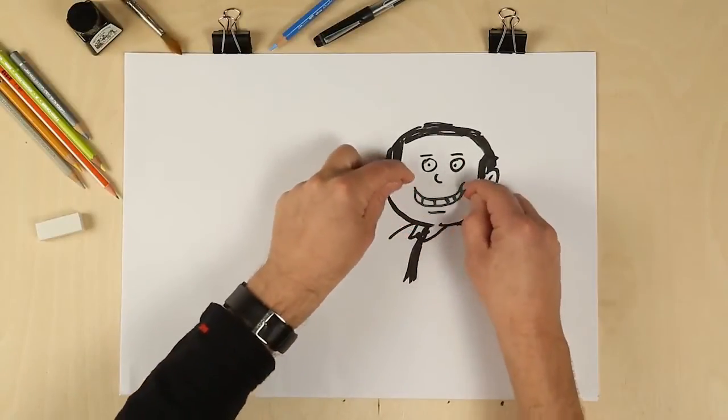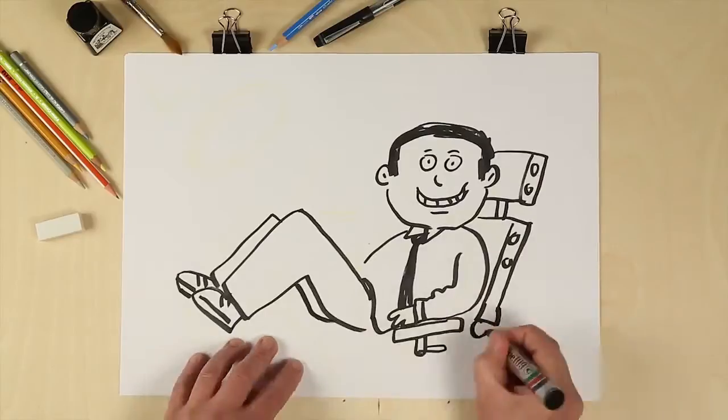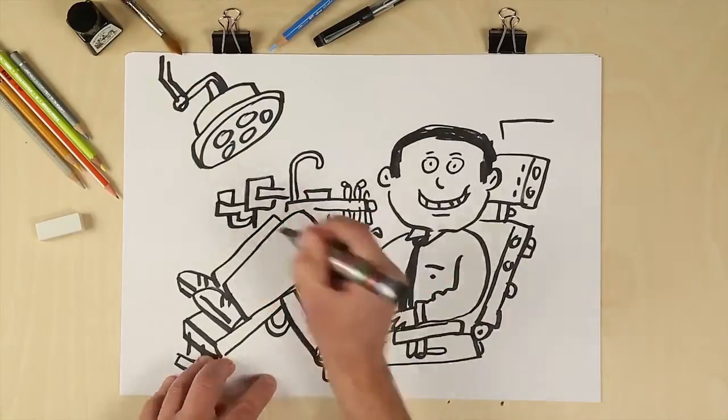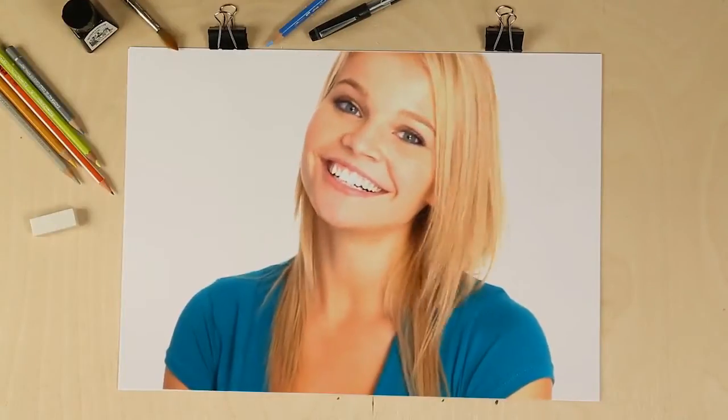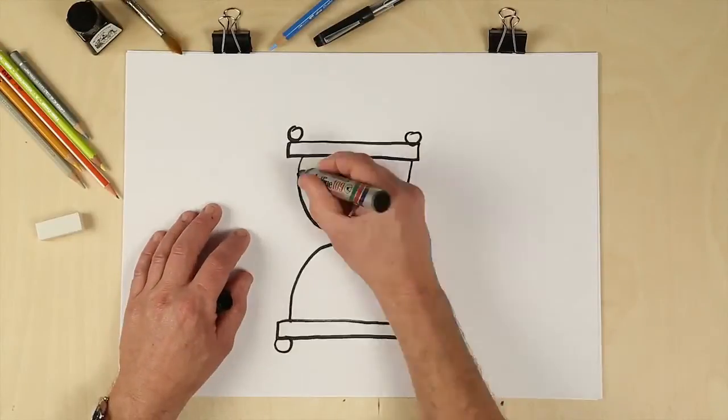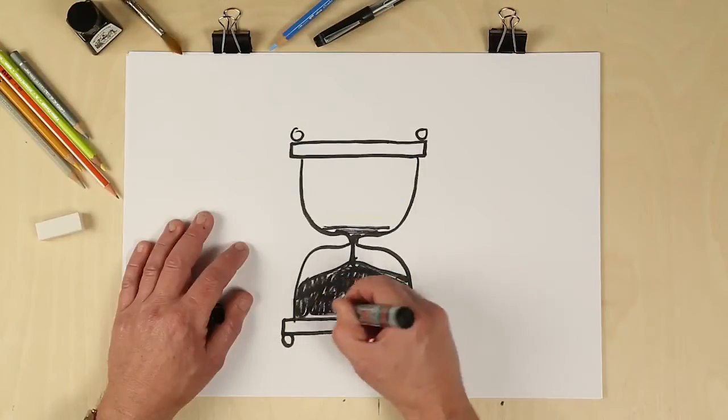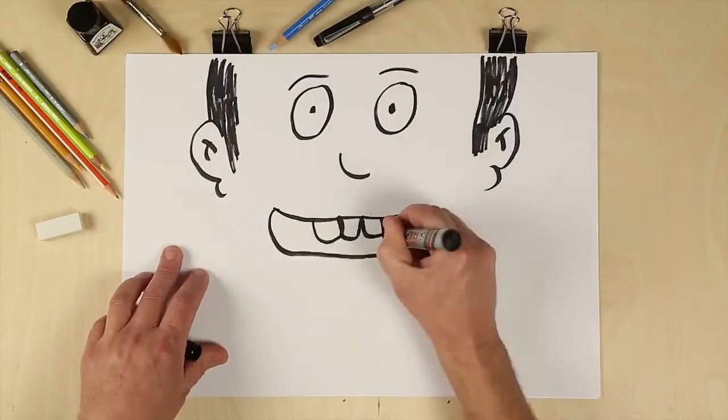Orthodontists create smiles. Face it, patients don't come to us for treatment, they come to us for results. We all know that crafting the perfect smile takes time, but by going digital we can do it much faster, more accurately.